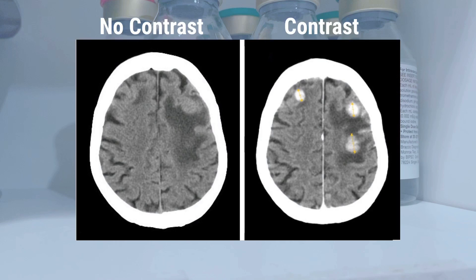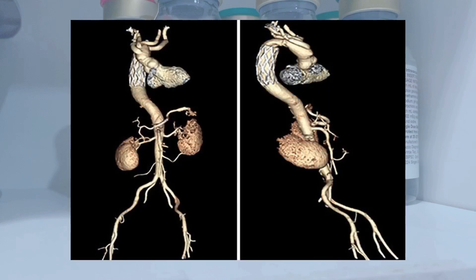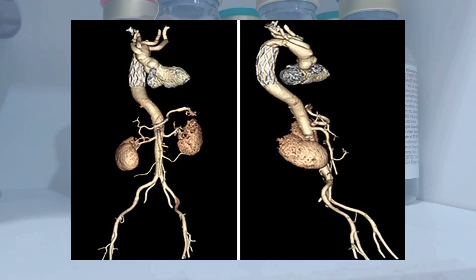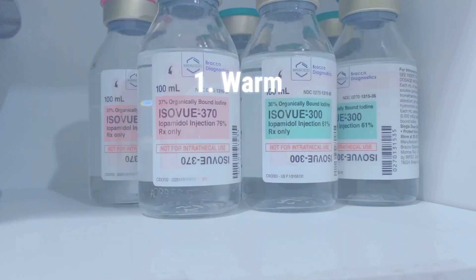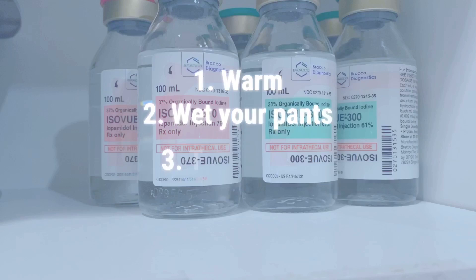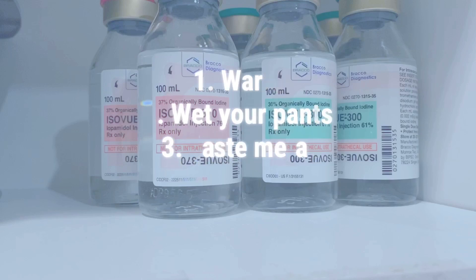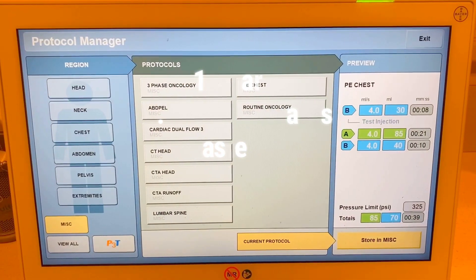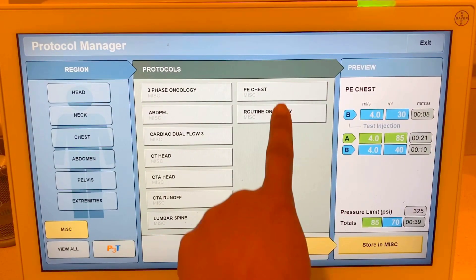We can use this to evaluate blood vessels and to better evaluate organs. The other cool thing is the 3D reconstruction. Before I inject the contrast I always warn my patients that they're going to feel warm all over, like they're peeing on themselves, and they might even have a funny metal taste in their mouth.